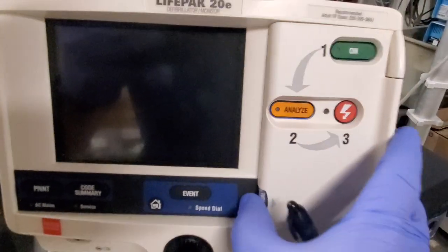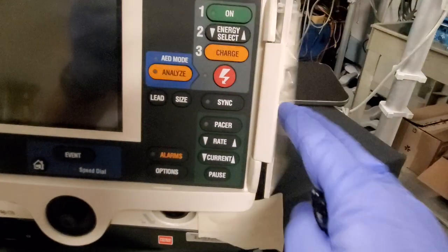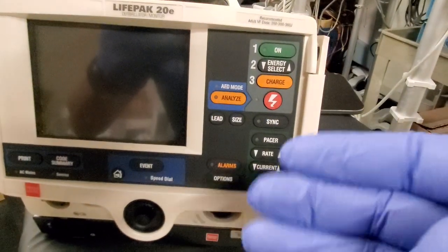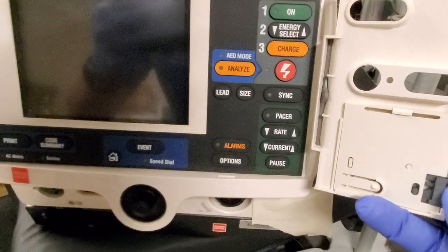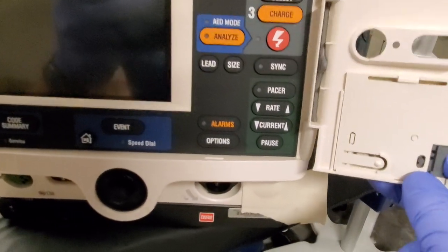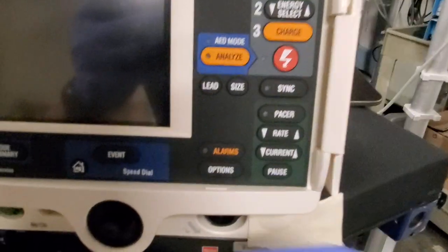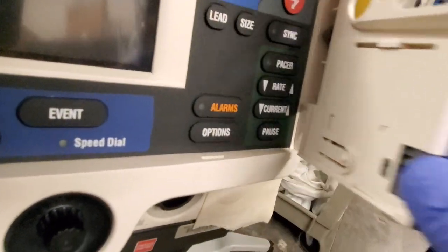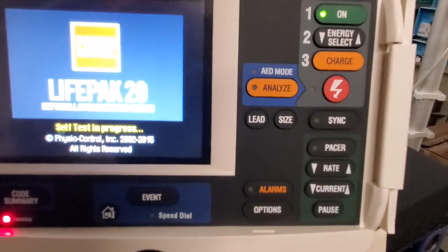I was looking at this and thought, wow, that's crazy. How does it know? I always thought there was a magnet under here interacting with a hall effect sensor — I just assumed that. But then I realized: wait, take a look at that. It's actually creating a button press. I thought it was probably just coming over and hitting the options button, since that's kind of where it's lined up. But guess what? That's not it.